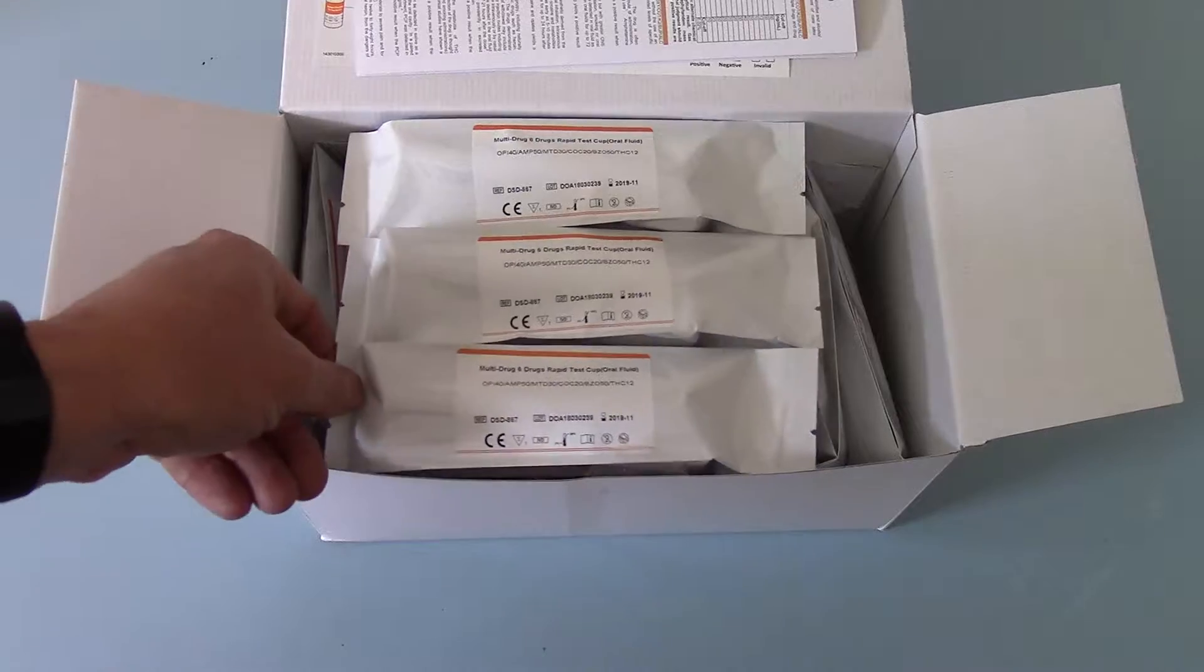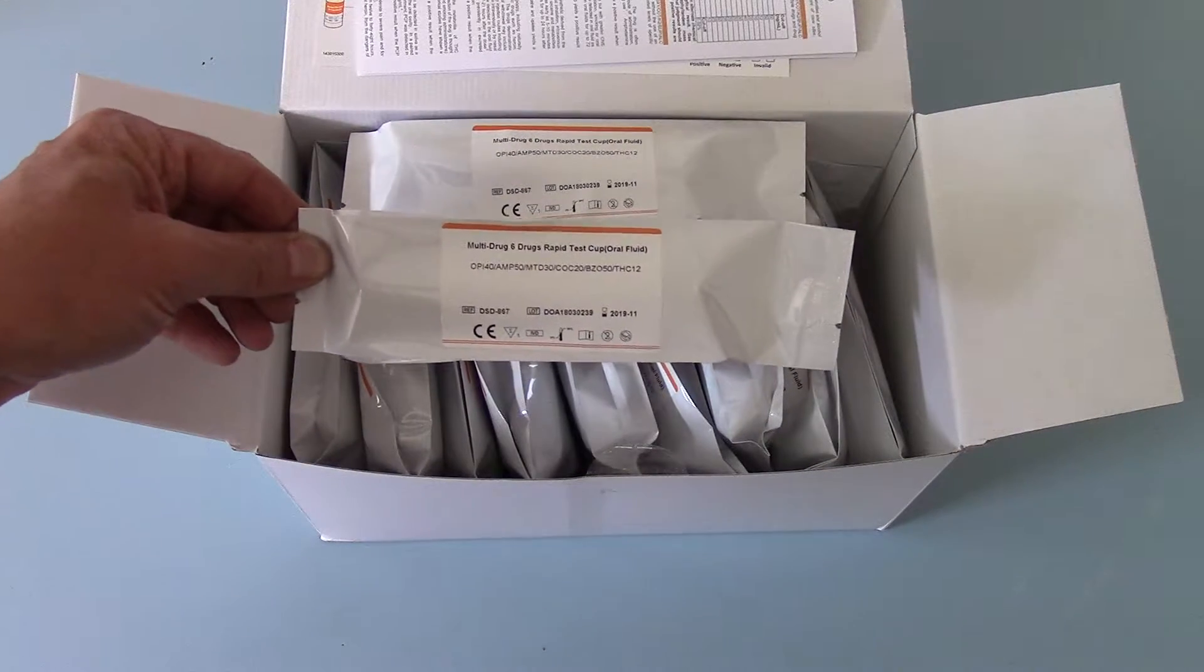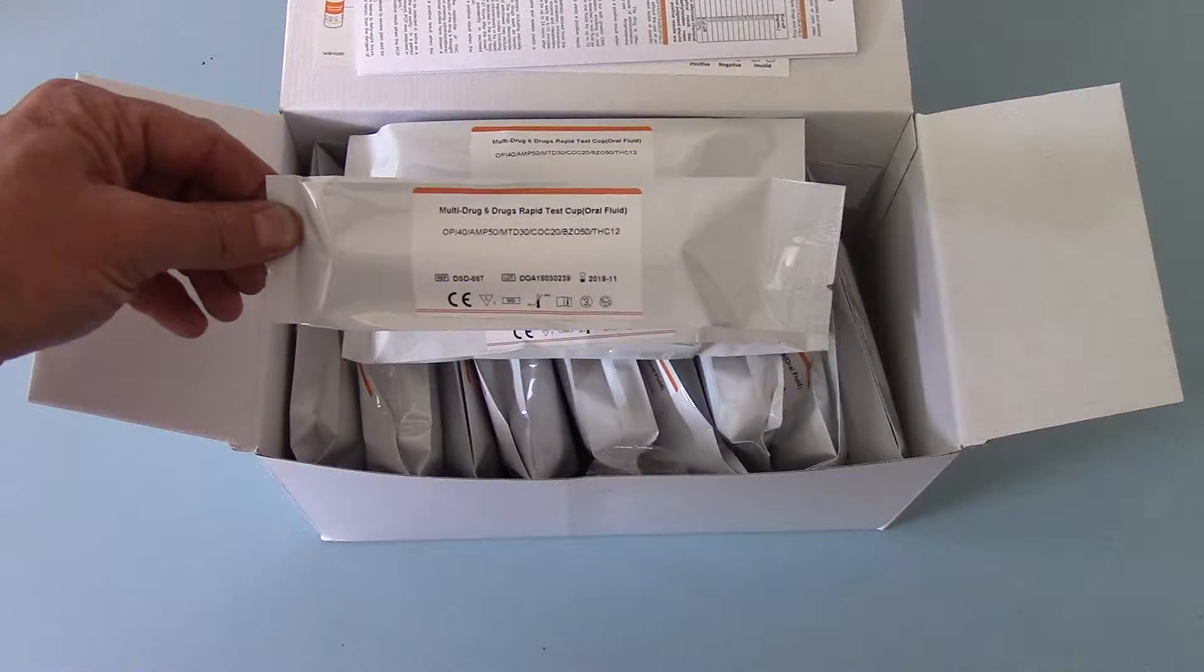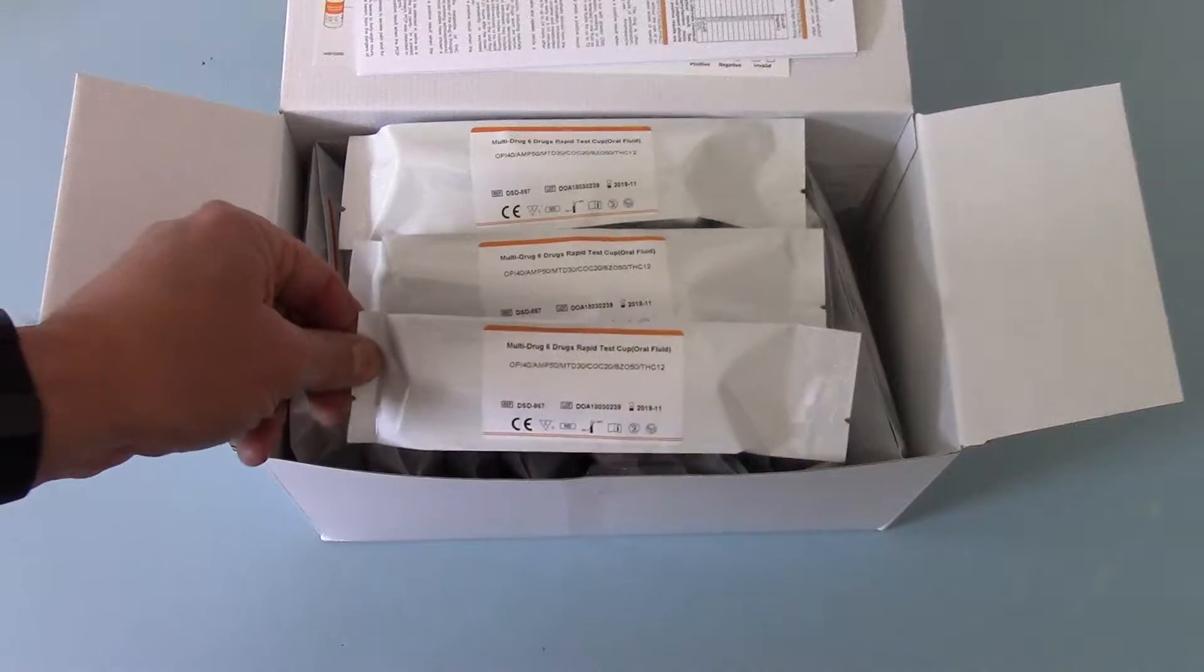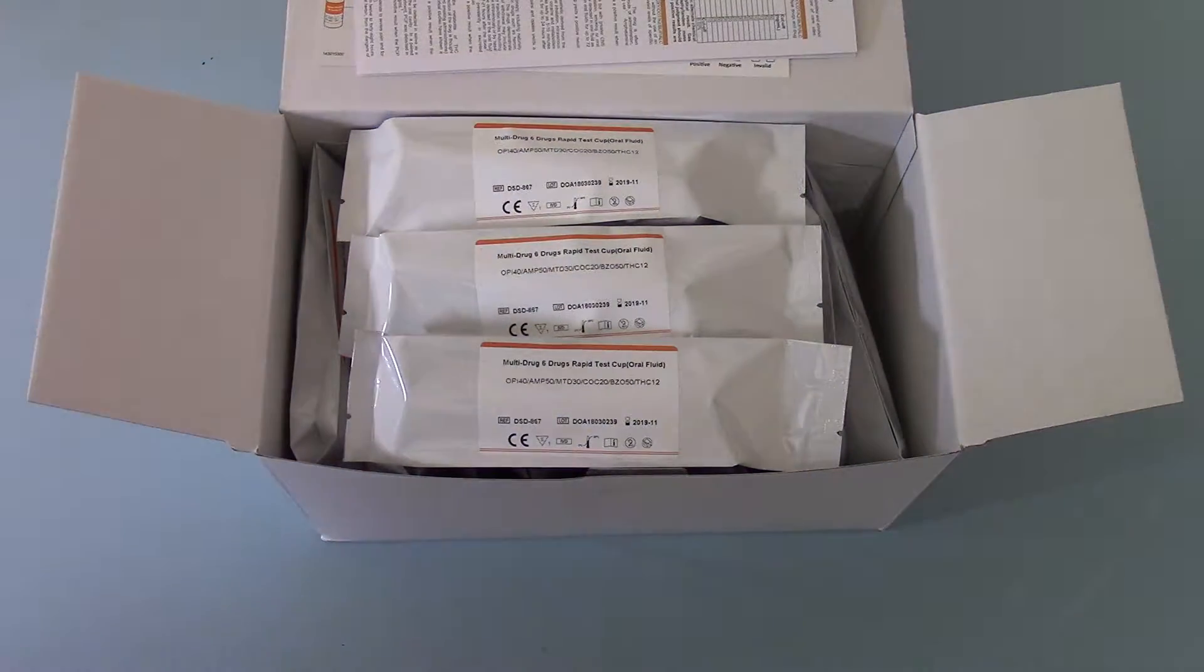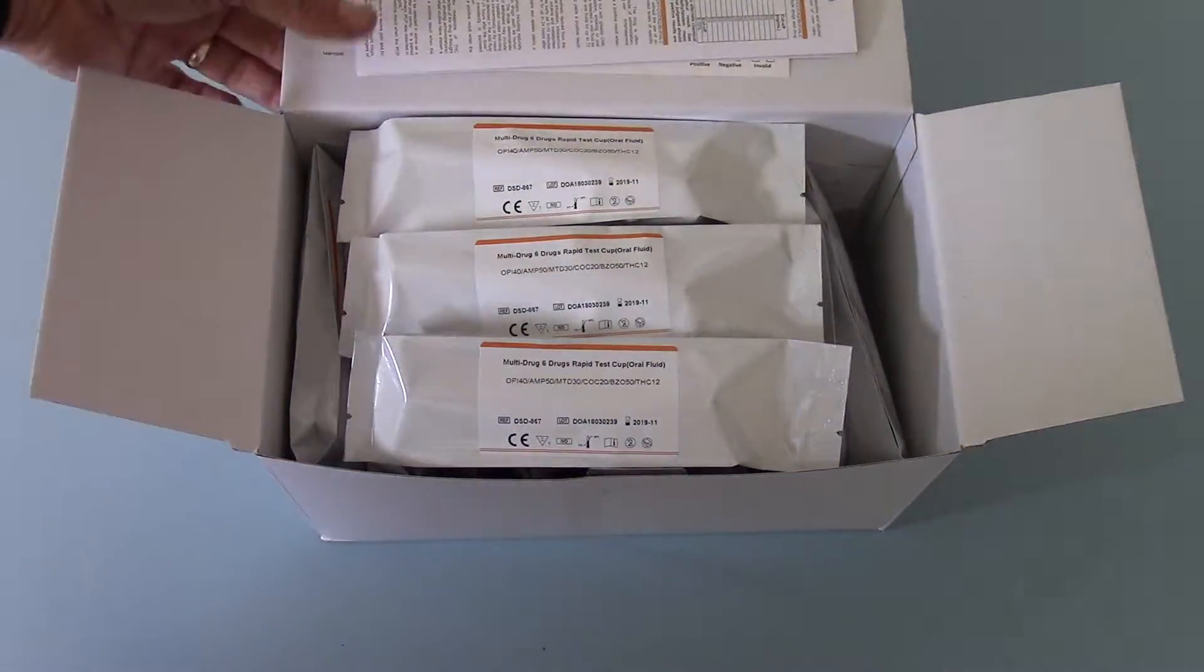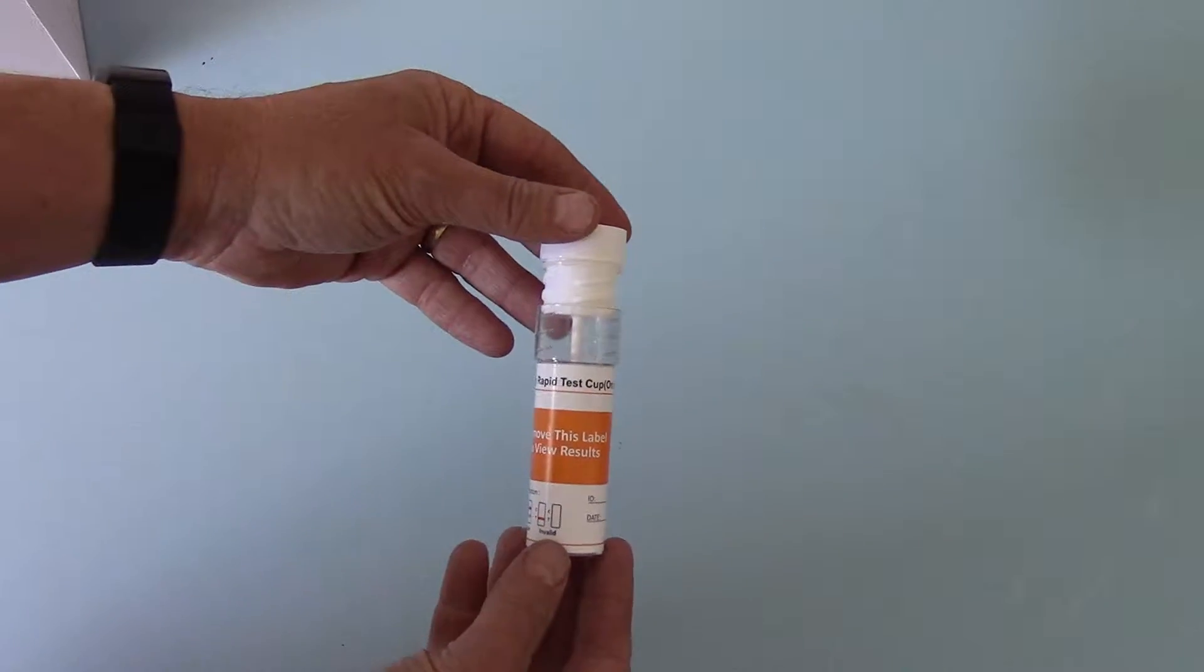And then within the box, 20 individually foil wrapped drug tests. These are barrel test design. If we just show you one of those out of the wrapper, just remove that and run you into the demo of the actual product.